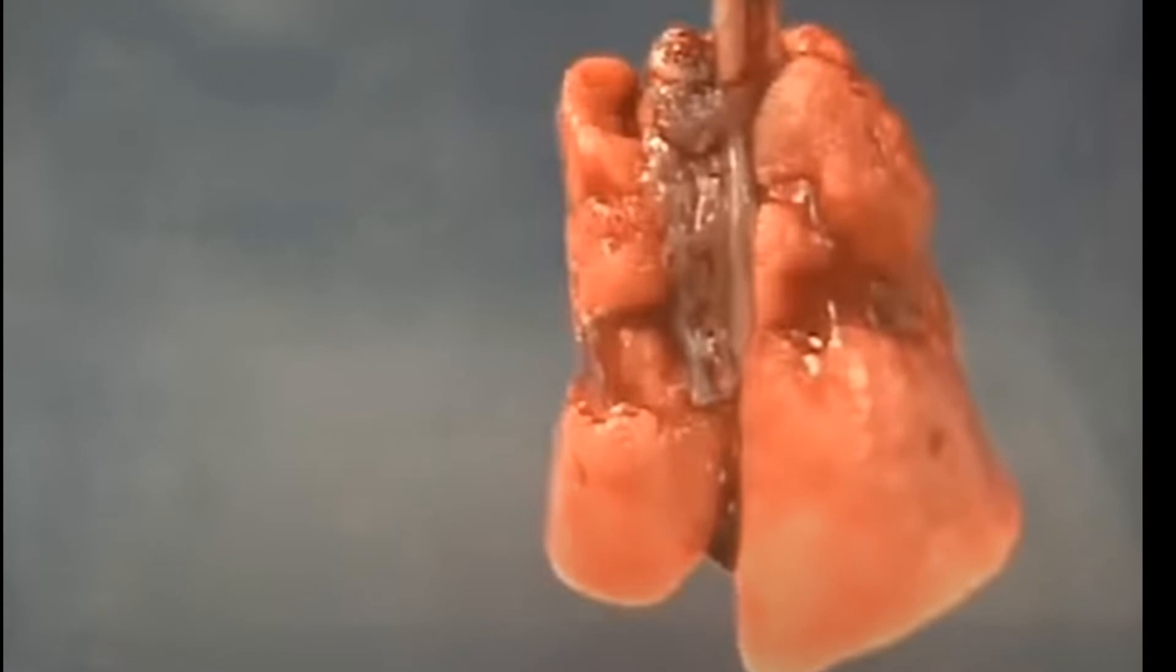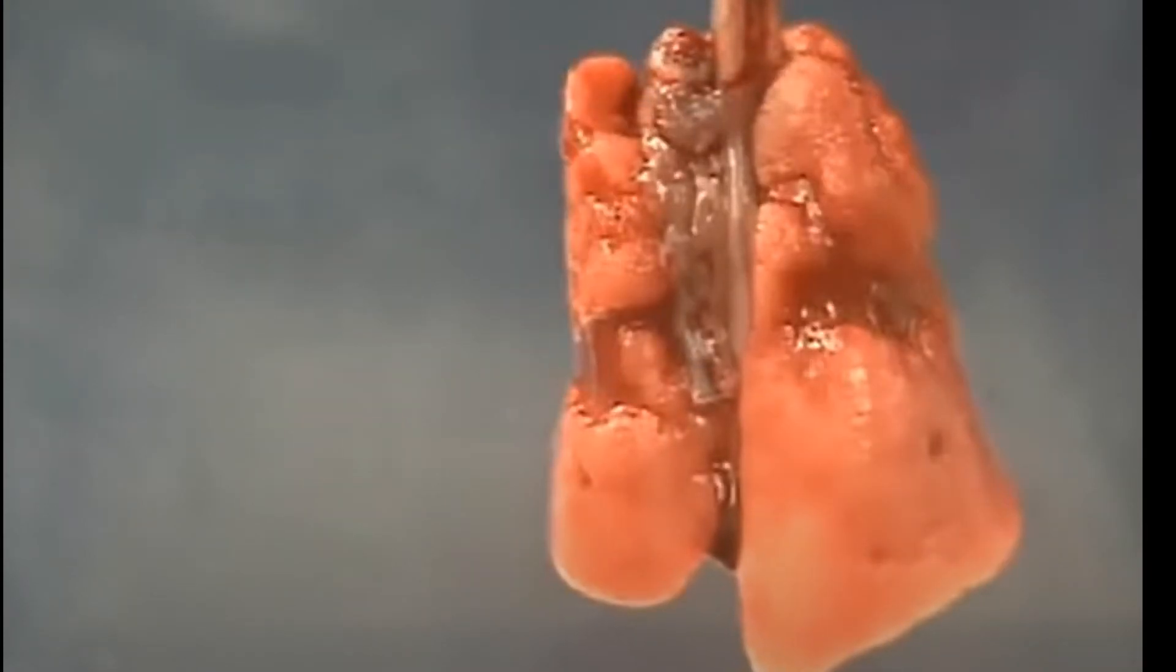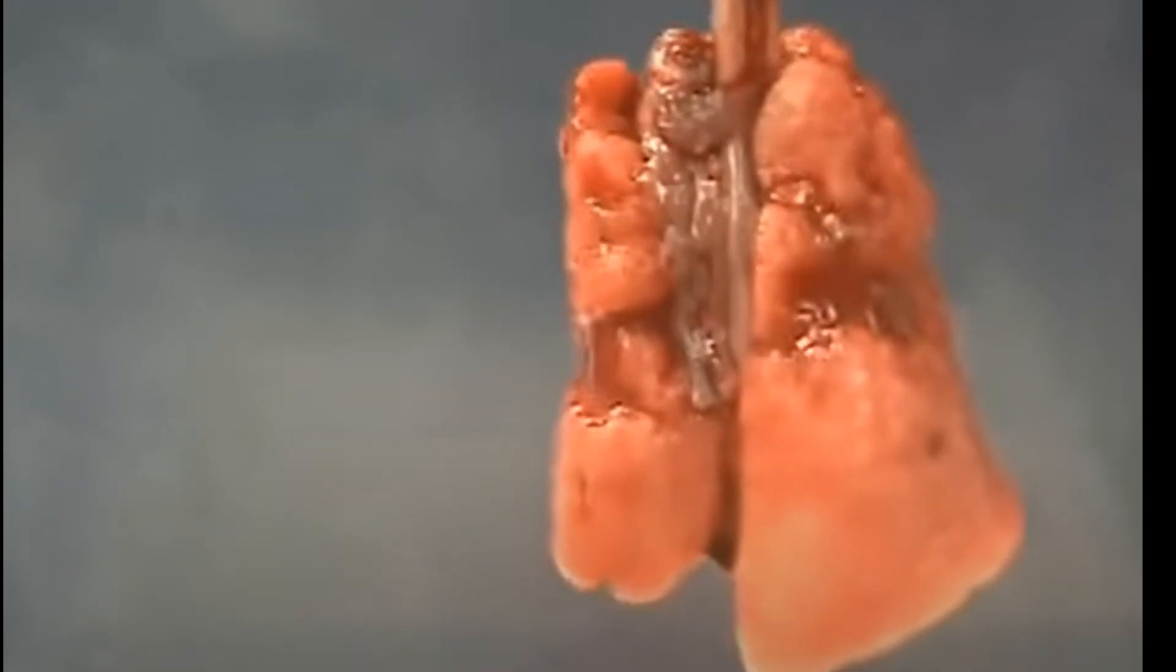Okay, we're going to take a look at a rabbit lung that is going to demonstrate zero PEEP and then increase it to 15 PEEP. We are recording again. This is a different angle. And we're going to go to 15 of PEEP now. So now the 15 is set. You're going to start seeing alveolar recruitment.